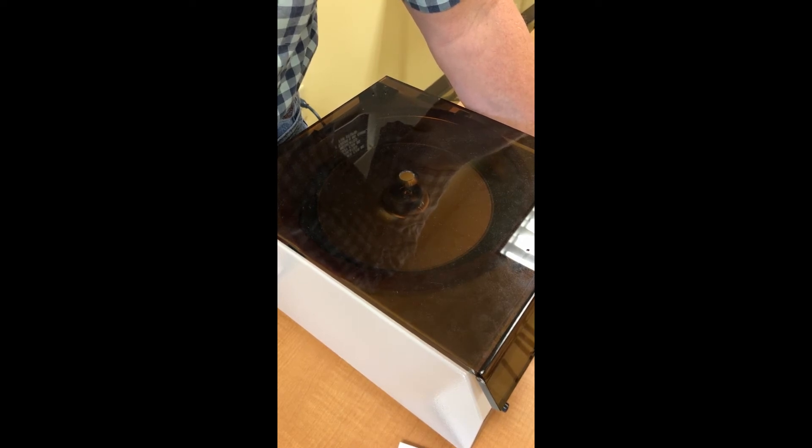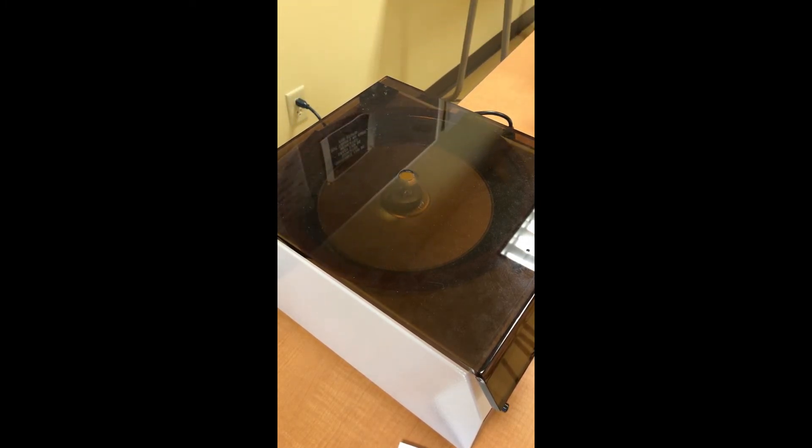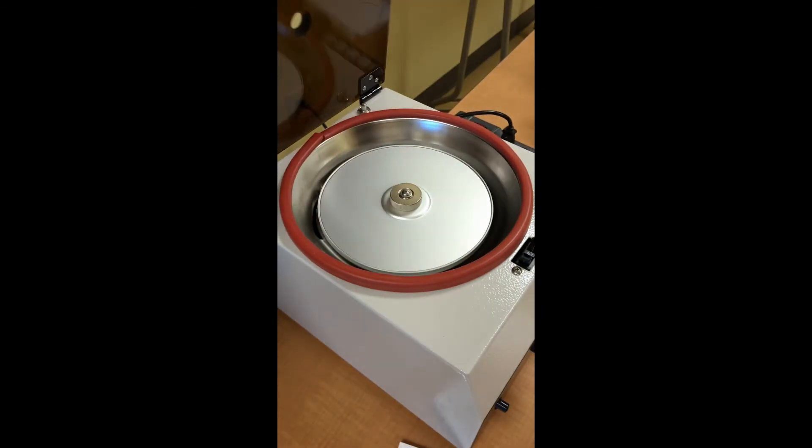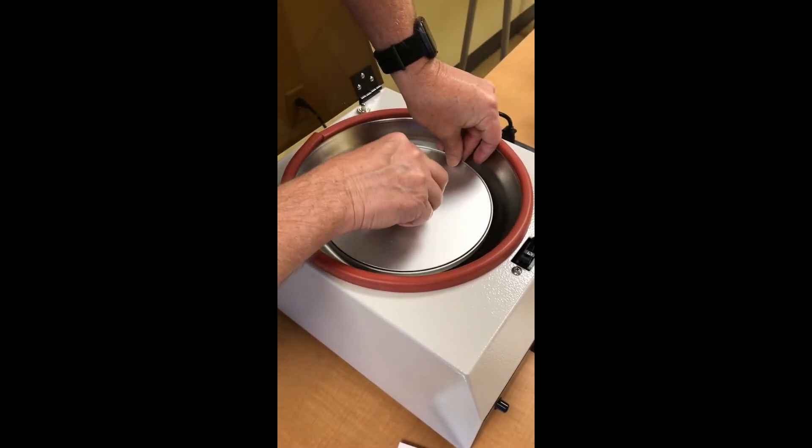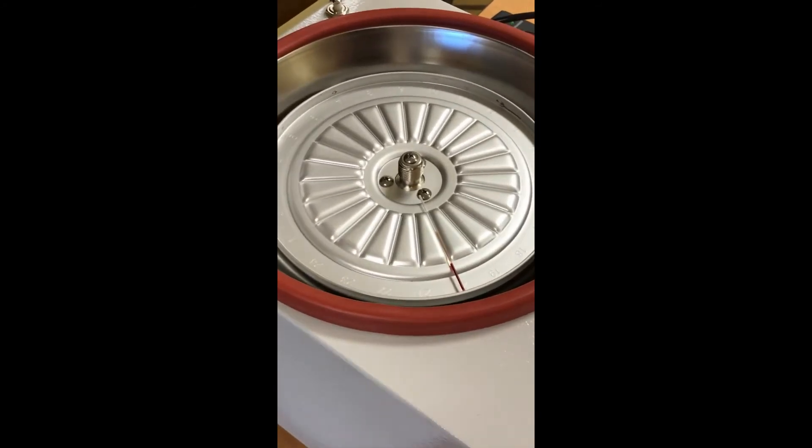So it should be just about separated. All right, we're going to let it stop and take a look at it. It'll slowly come to a stop right here all by itself. We'll see if it's separated and take our little measuring stick, which is this round plastic device, and see what percent the red blood cells make of the total blood volume. Okay, it's just about stopped there. Let's take off our little lid right here - it just unscrews. And there we have it, very nice. Now let's see if I can turn this and maybe zoom a little so you can see what I'm doing right here.